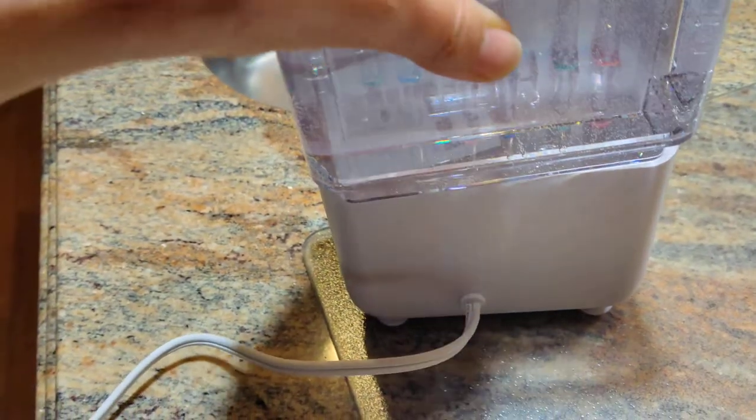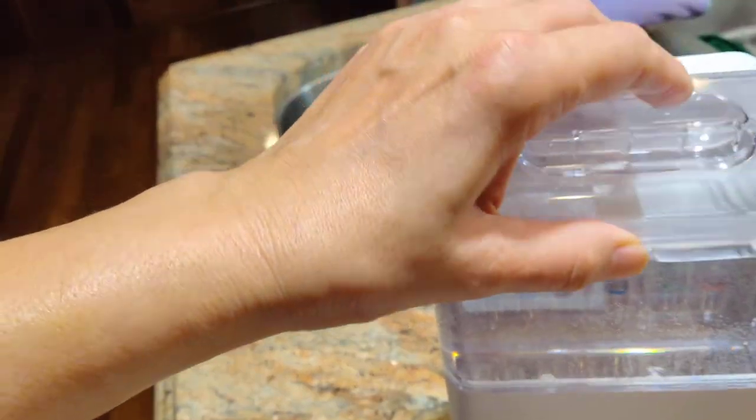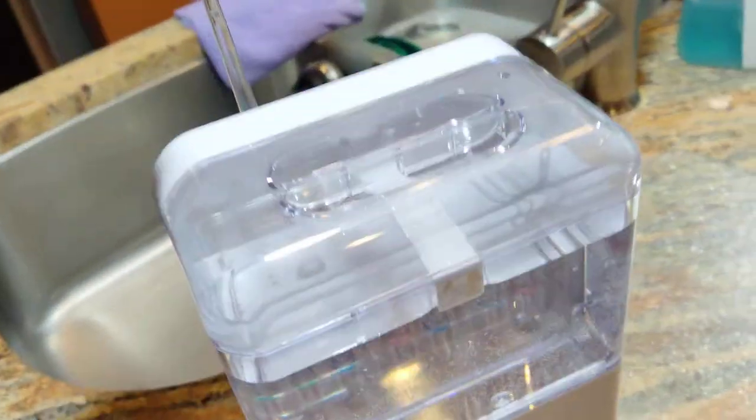The tank sits right there, there's a handle on it, so you put the tank there and then the lid on top of that and you're all set to go.